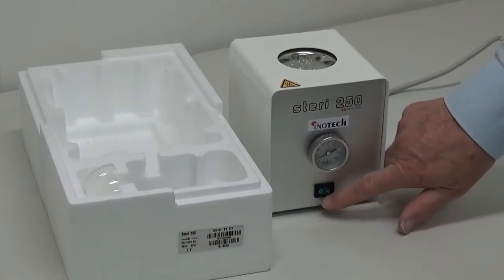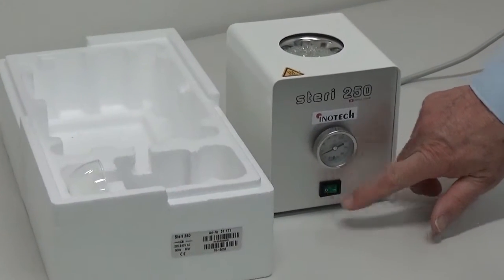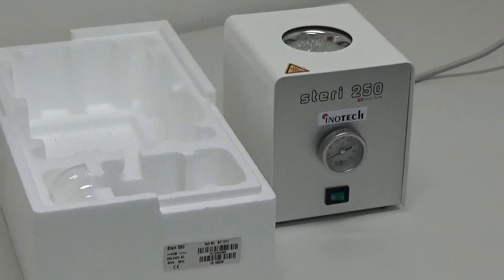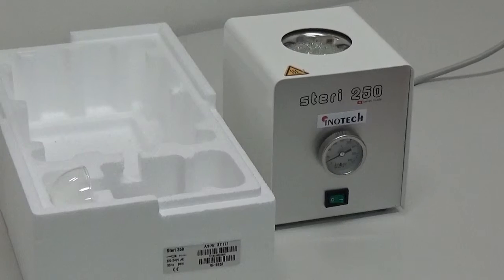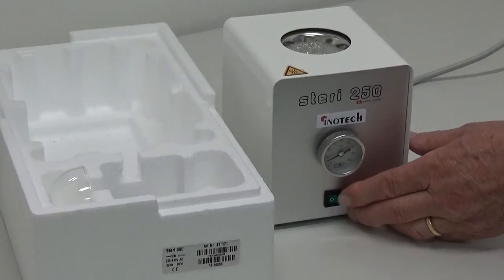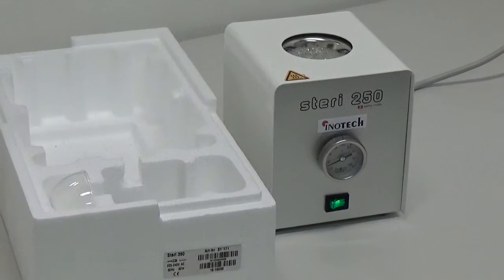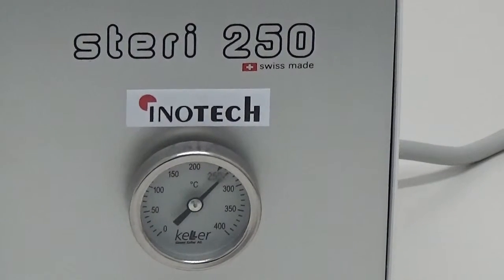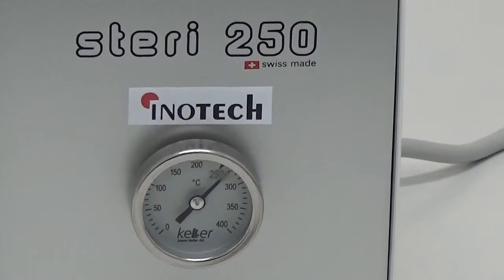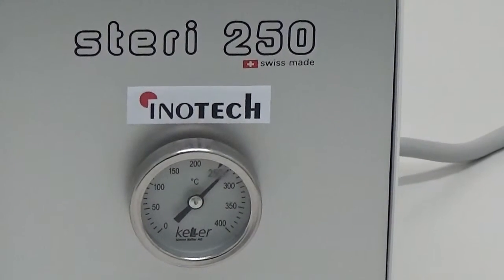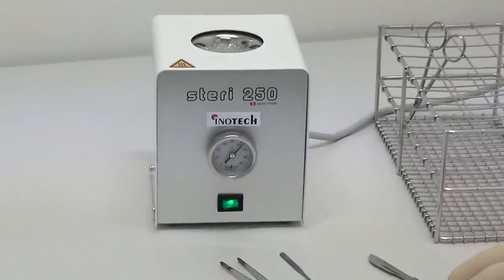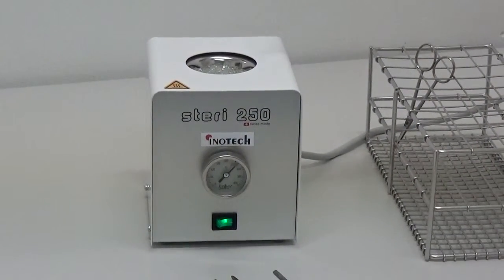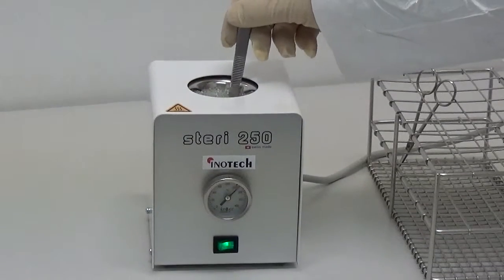Then, turn the power switch on and wait 20 minutes till temperature indicator shows 250 degrees. When the temperature of the sterilizer reached 250 degrees, stick your instrument into the glass beads.